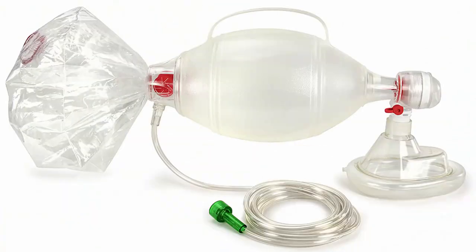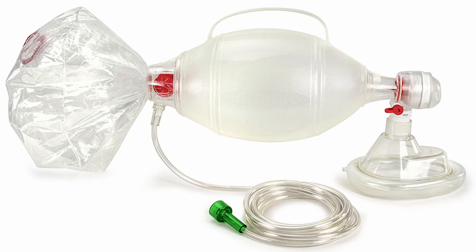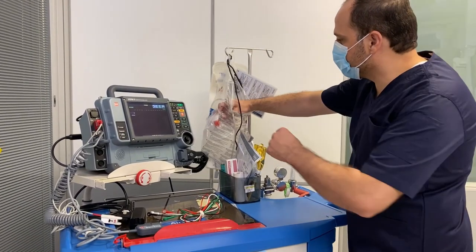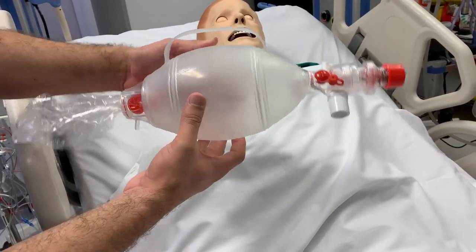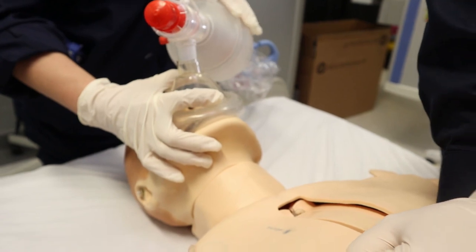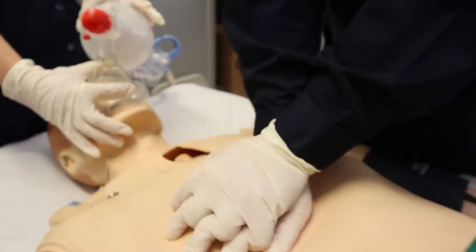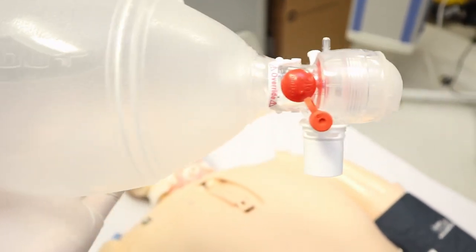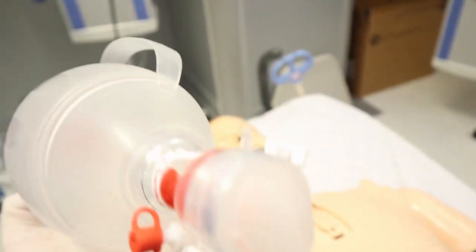Let's speak about one of the most basic and important parts or equipment found in the crash cart: bag mask or manual resuscitation bag. Most of us know it as Ambo bag, related to the company who's producing this bag. It is used to provide positive pressure ventilatory assistance to the patient with apnea or inadequate ventilations.